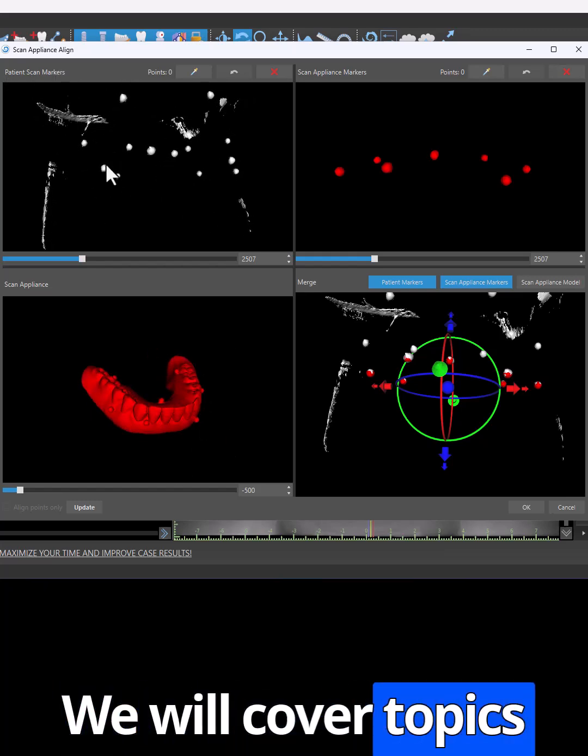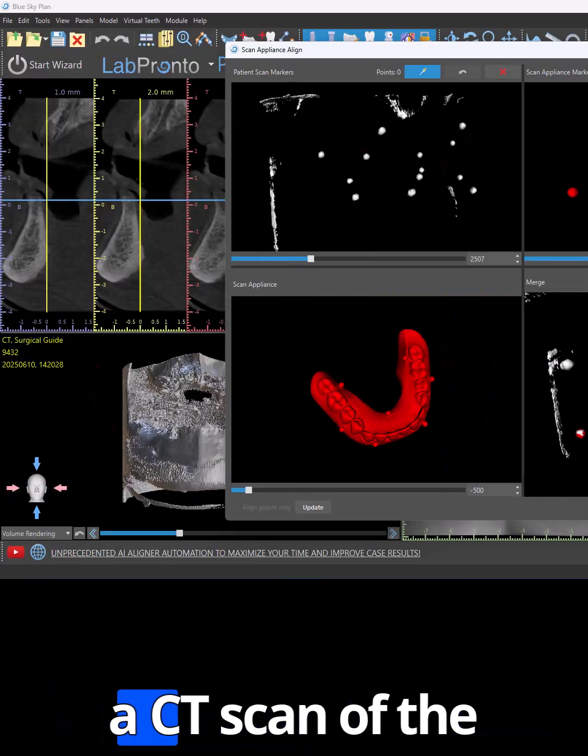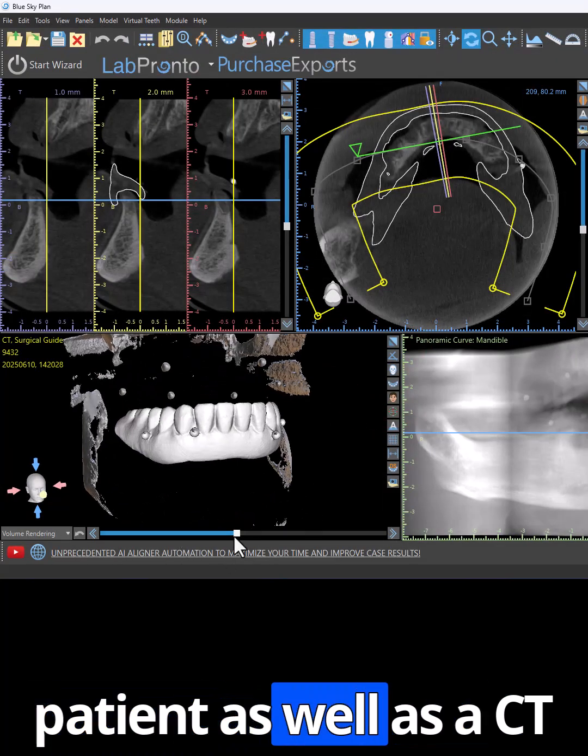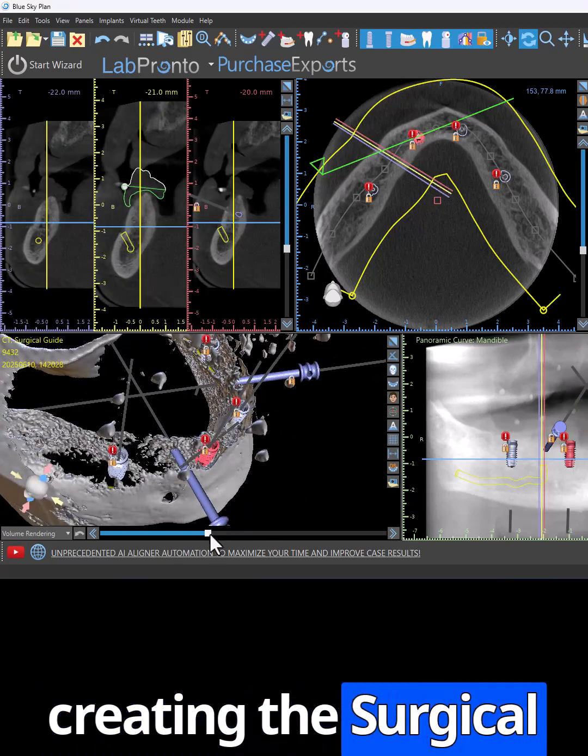We will cover topics such as creating a surgical guide from a dual scan technique, a CT scan of the patient, as well as a CT scan of the denture, merging them and creating the surgical guide.